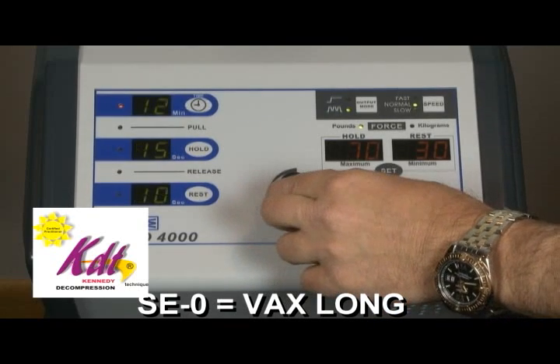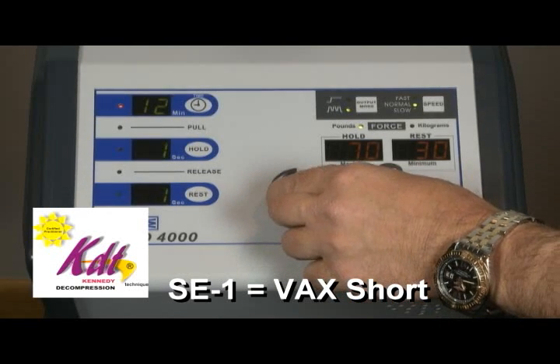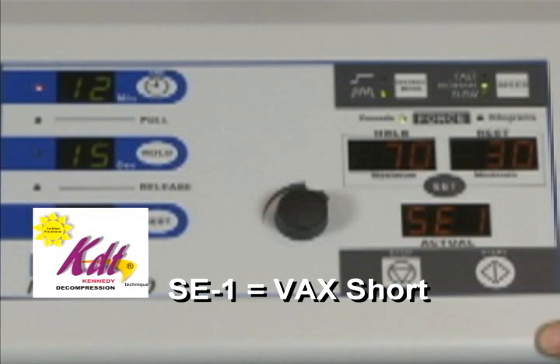Turn the control knob clockwise until SE1 appears and then press the start button. Notice that the SE1 displayed in the actual force window begins to flash on and off. SE1 is the VAX short lumbar protocol.